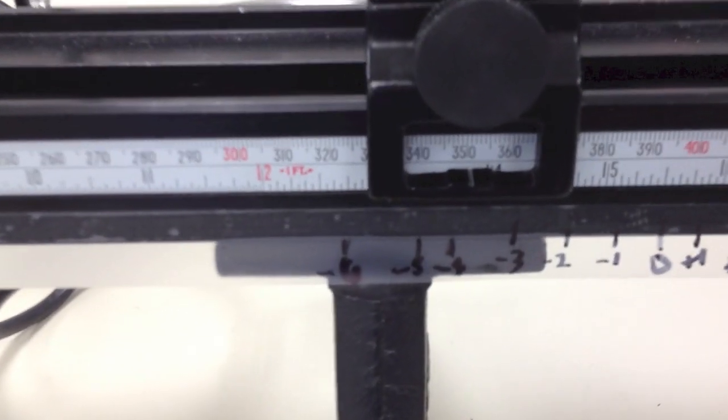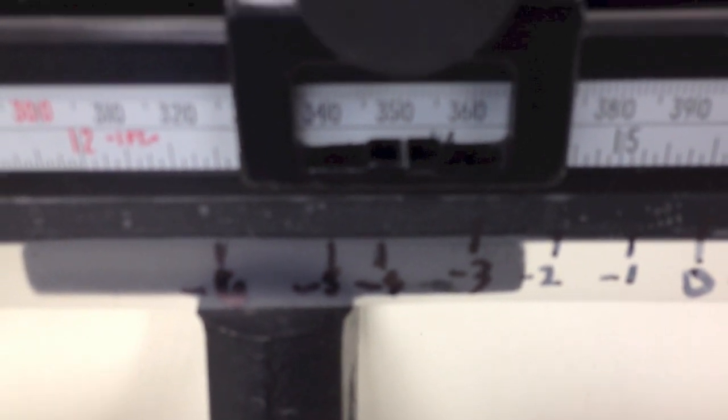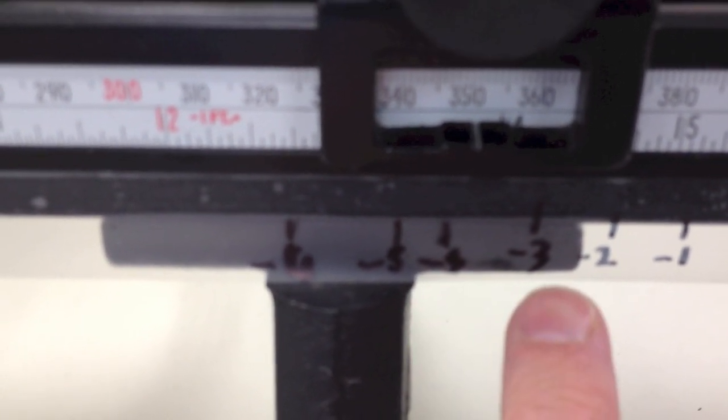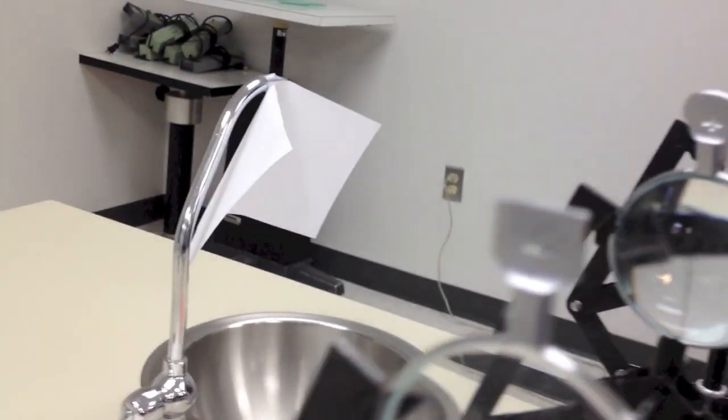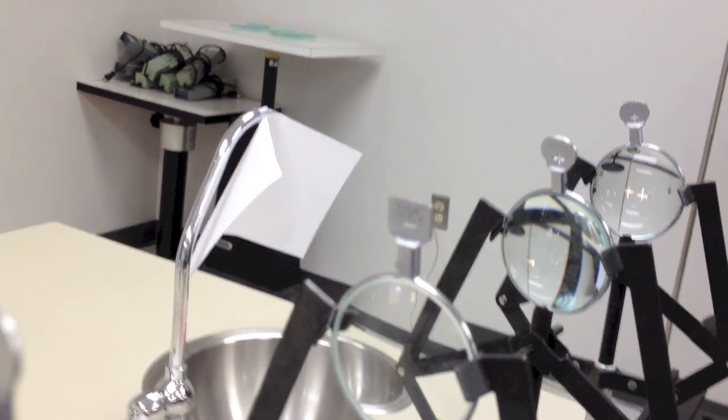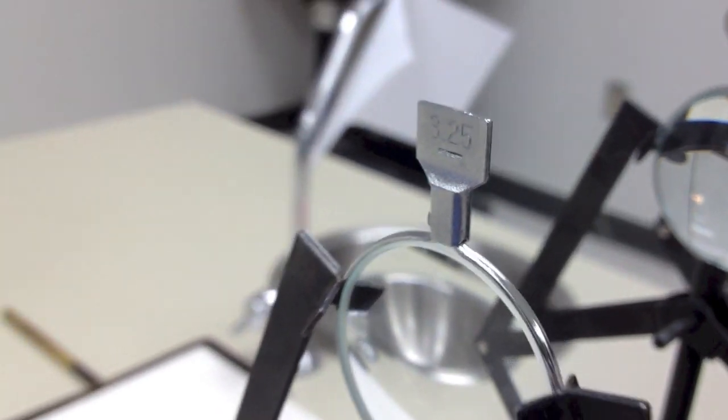Okay. So I've made my measurement. Let's see where I ended up here. I've ended up almost at minus four. You can see my target position is closer to four than minus three. And let's see what I ended up with. I didn't cheat here. I really didn't look at this. And we can see that the number on my unknown lens, if it'll focus here, is three and a quarter. There you can see it. So it came pretty close. Wasn't exactly right, but it came pretty close. So when I measured it on the bench here, again, I got about a half a diopter off or so from where it's supposed to be.